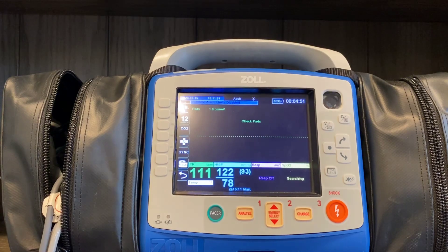While the goal is to get the reading on the inflation, it's not going to happen like that every time — especially if the patient is moving around a lot or you're driving down the road. In those situations, if you have the limb lead cables and can place those on the patient, that'll act as another source of QRS information and help the machine synchronize the inflation with the patient's heartbeat.